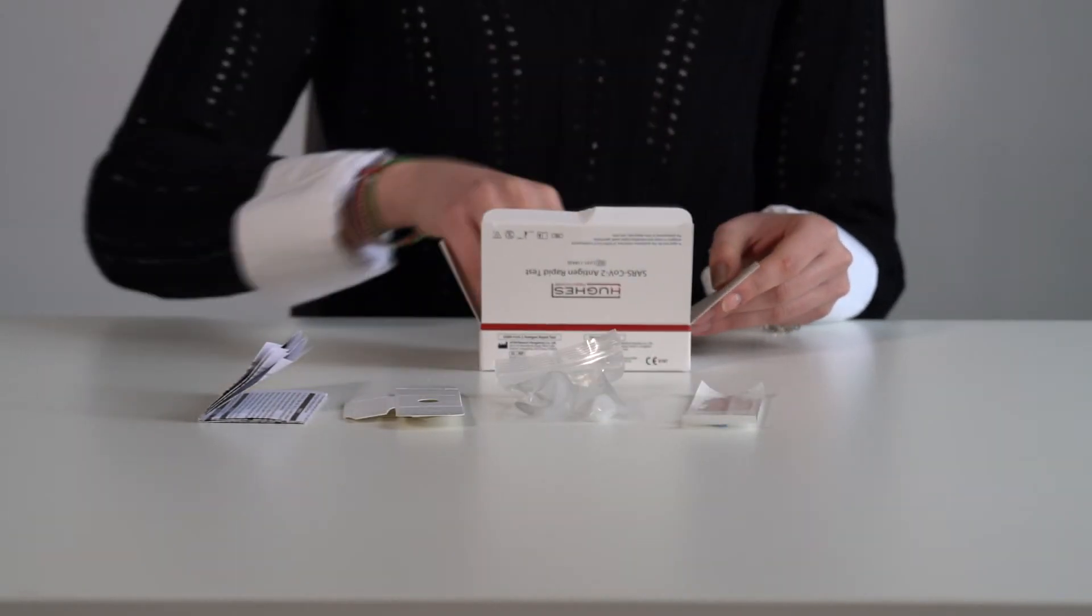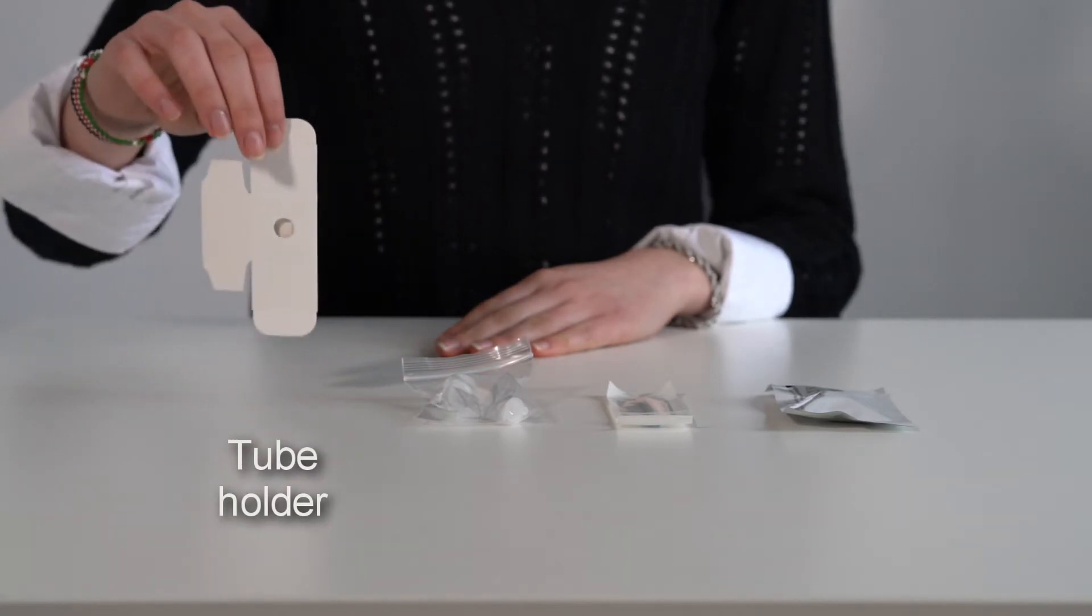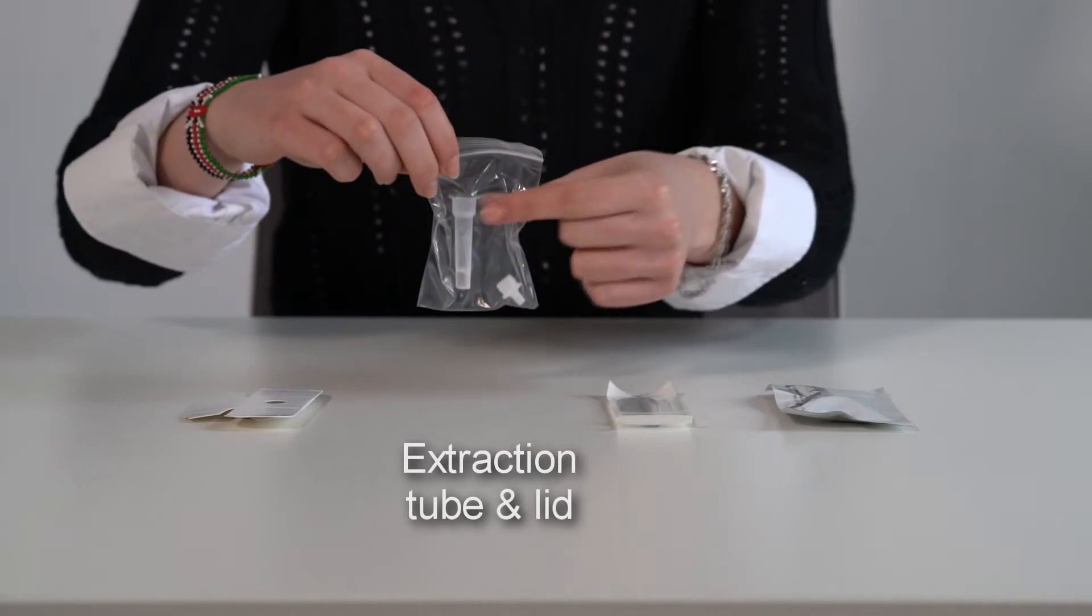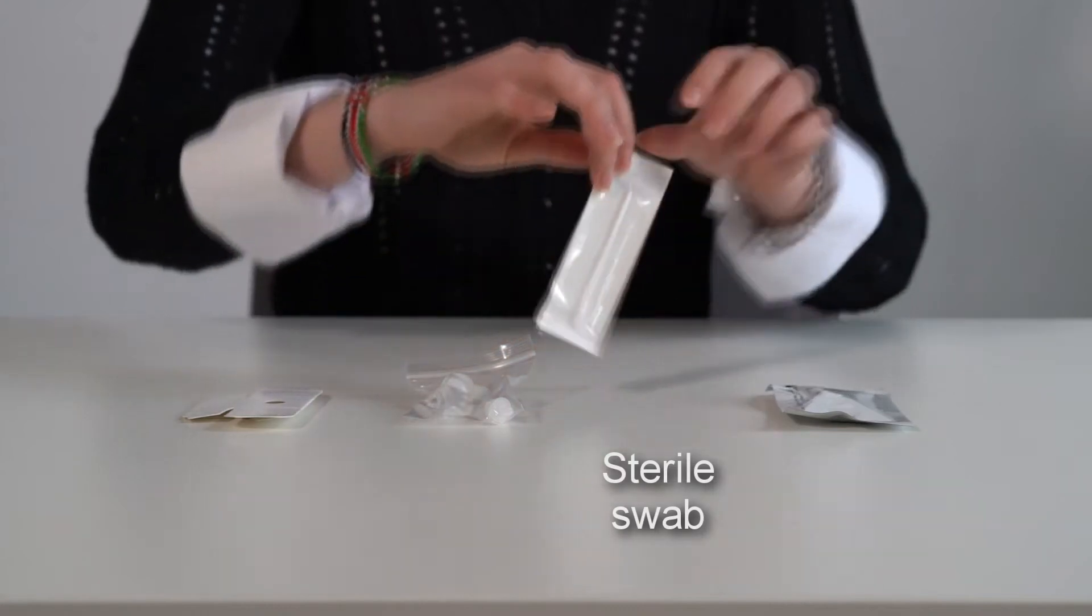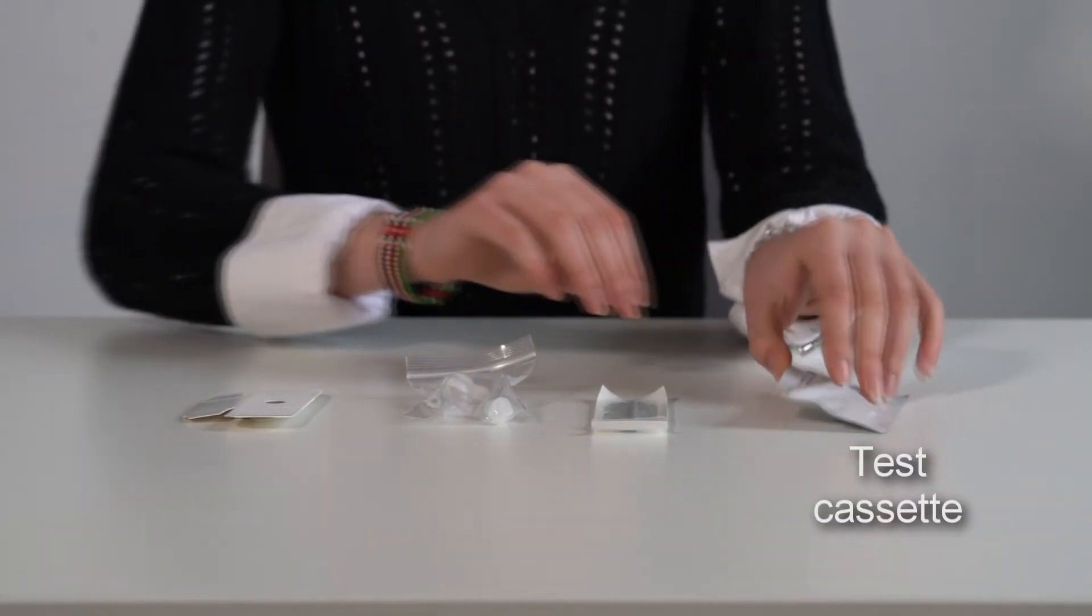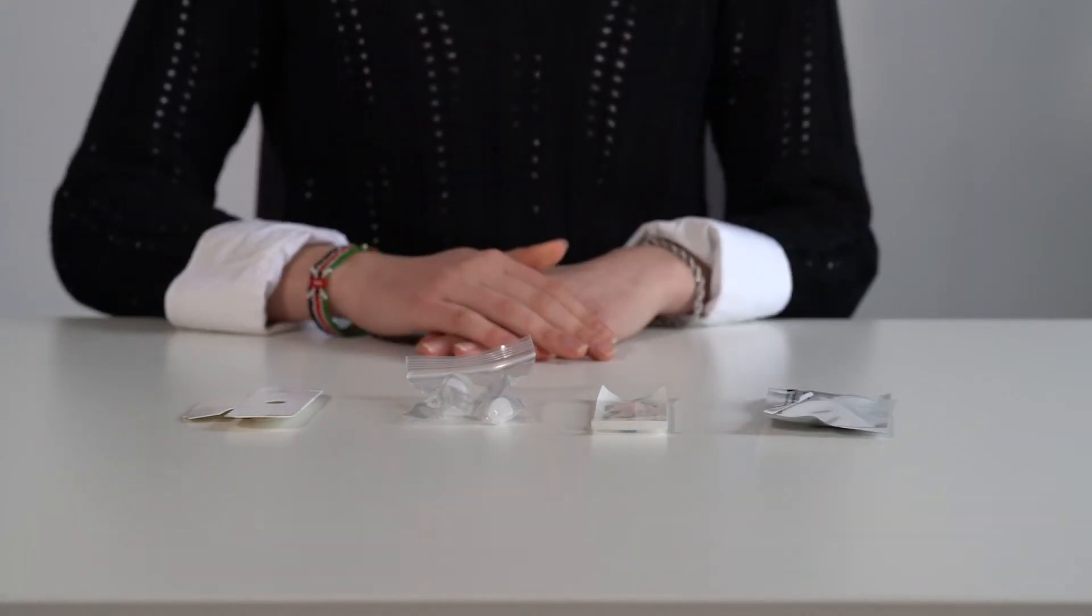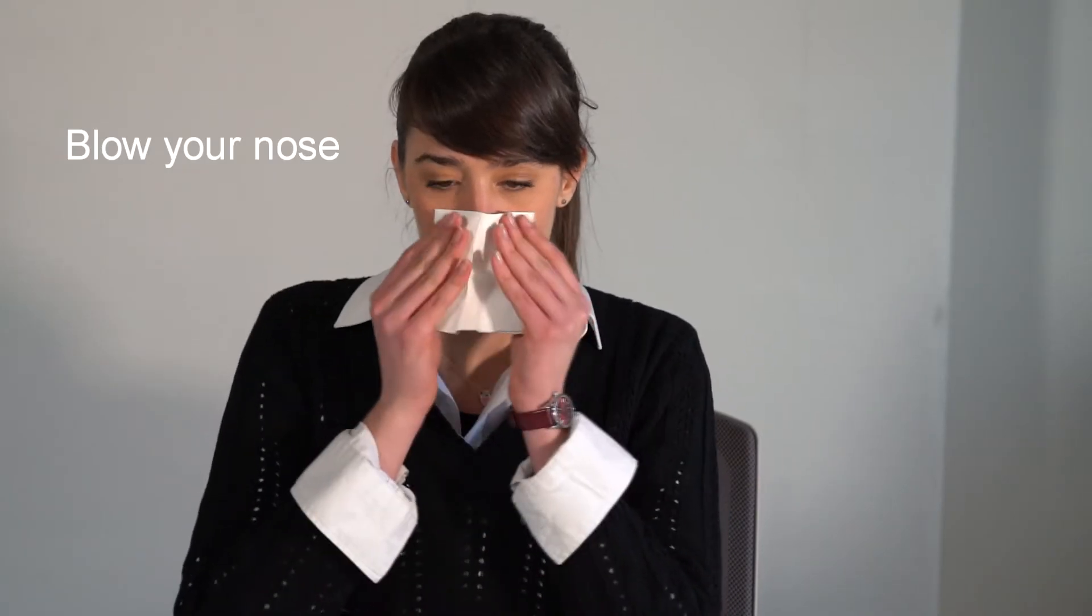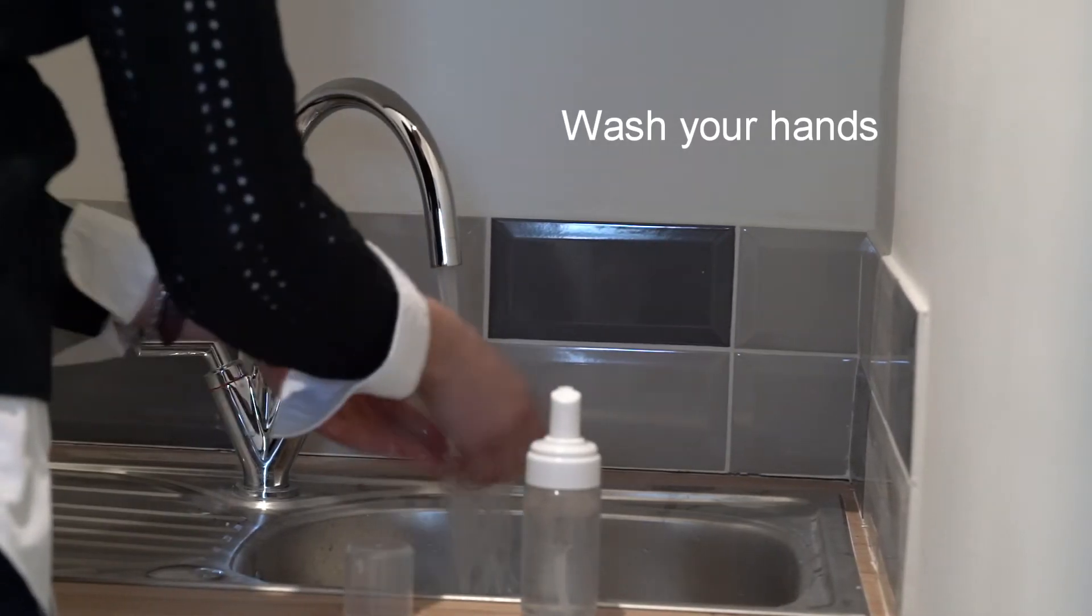Use the test kit checklist to make sure you have everything. Now gently blow your nose into a tissue. Wash your hands thoroughly for 20 seconds.